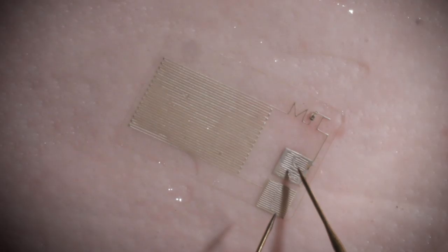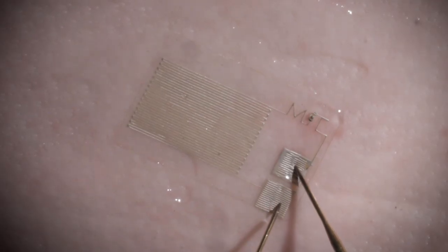It can also adhere different types of bioelectronics devices quickly and with less pain, less scarring, and less infection.